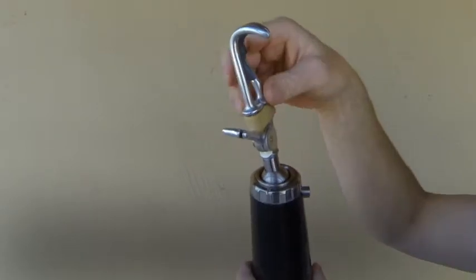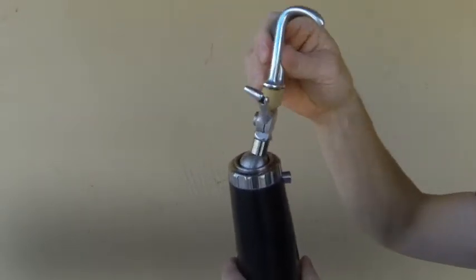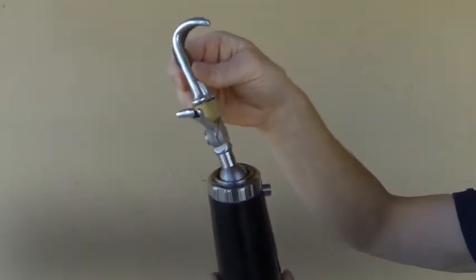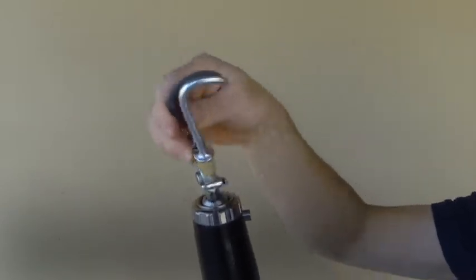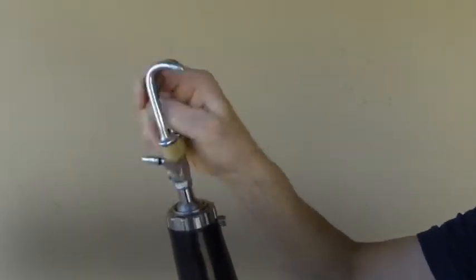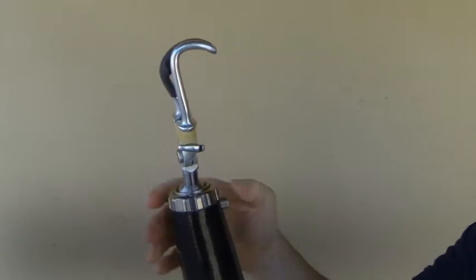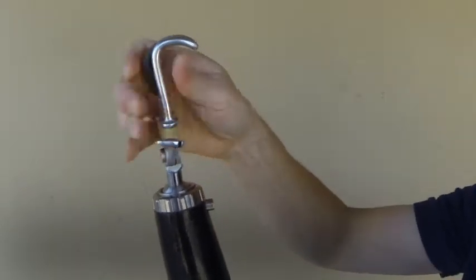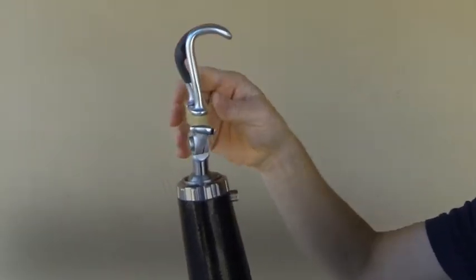The Robo-wrist has many different features. It can be in an unlocked position where the ball and terminal device are free to rotate, both rotation as well as flexion extension, and it can also be locked by pressing the button in any position.